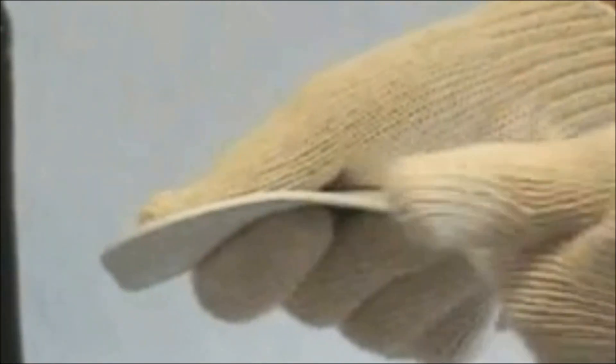Again, you're going to choose the appropriate area. You can mark it with a pen if you need to, and mold that down. You want it to start molding down just where the patient's toes join to their foot.